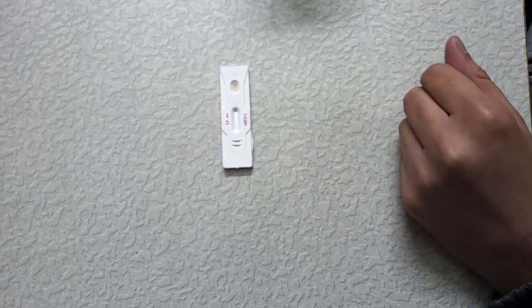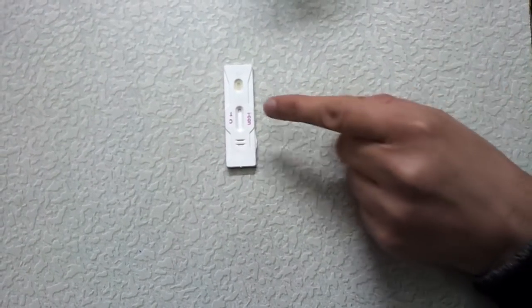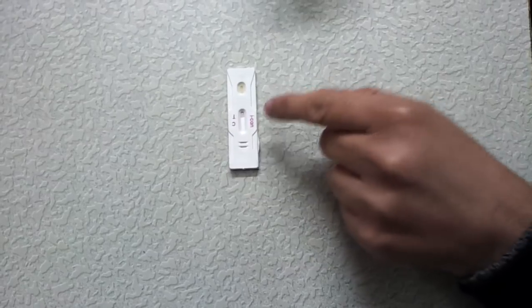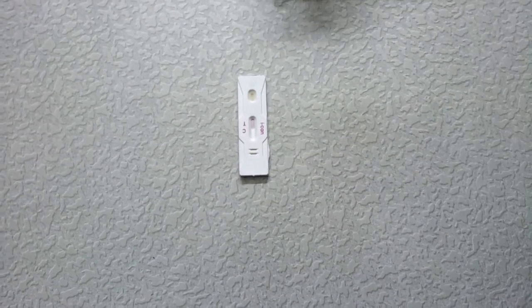Let's wait for some minutes. Now this is the result area. I will tell you how to read the results. For timing, let me show you.